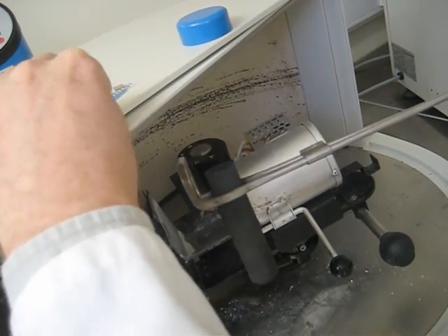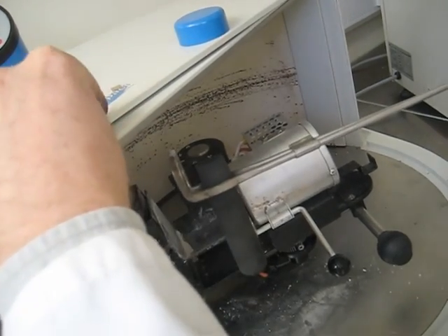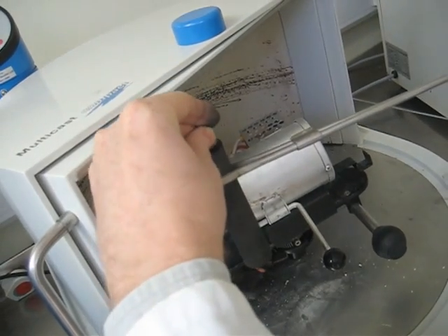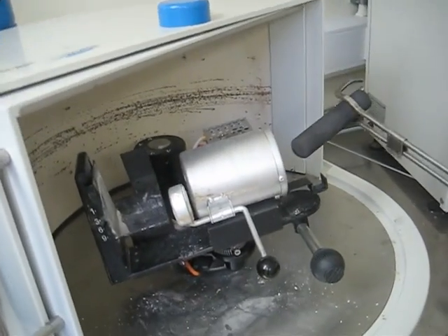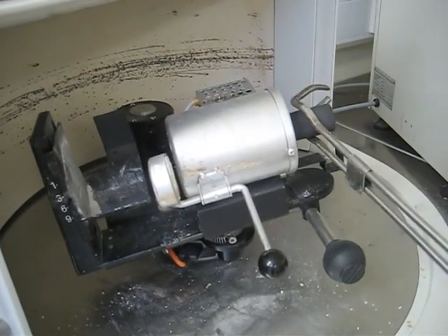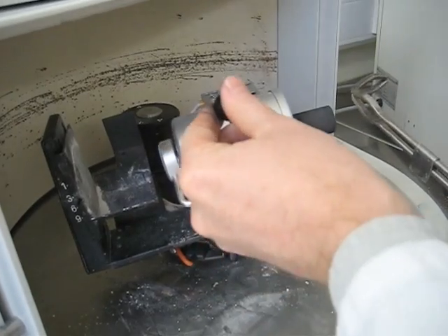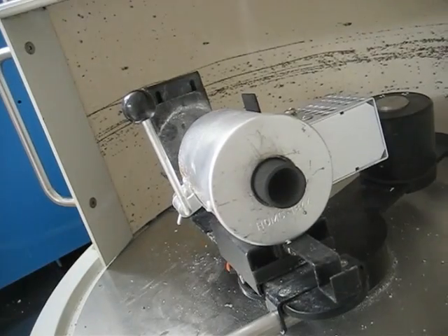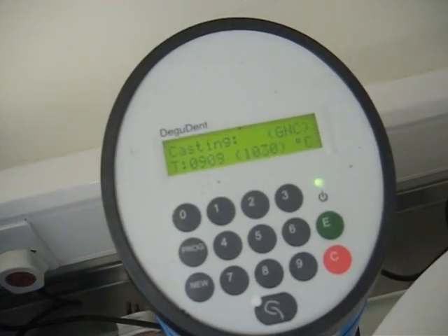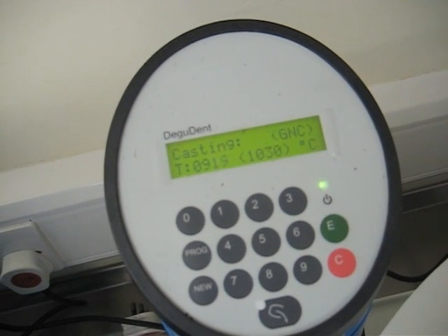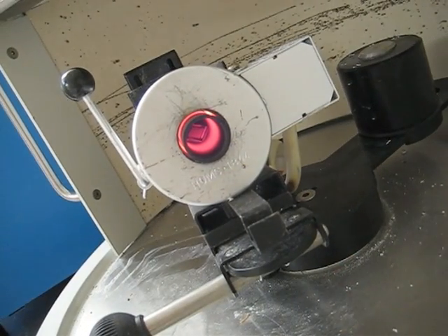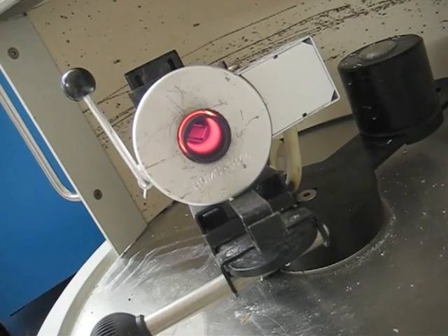Very quickly, casting machine. This is the gold going into the carbon crucible here and that's behind the casting machine and you can see just a little tiny oven, the silver bit there. We were just waiting for it to get up to temperature. It happens quite quickly this process. In about five minutes you'll be sort of getting ready to cast. Now you can see the ingots are still intact at the end there.